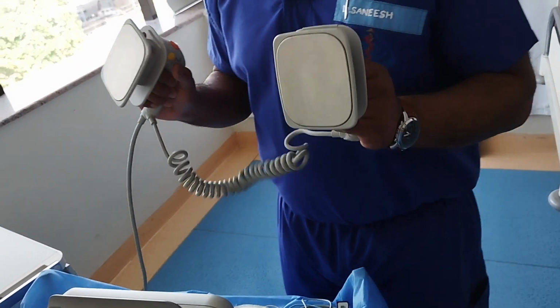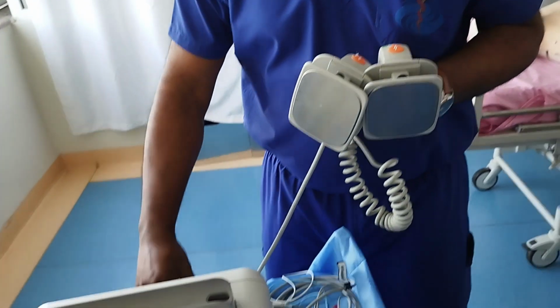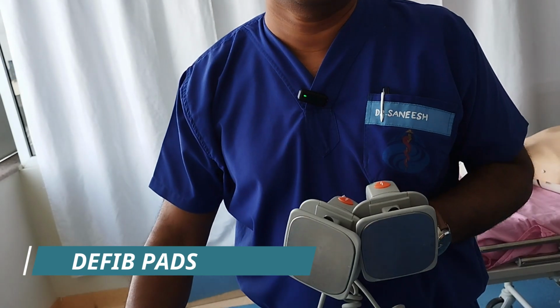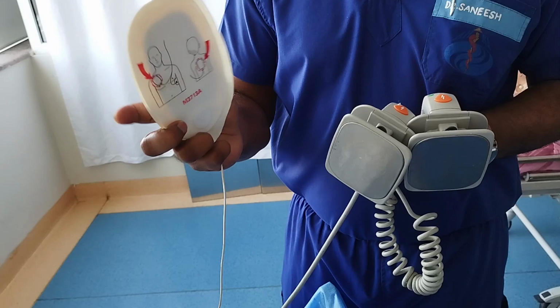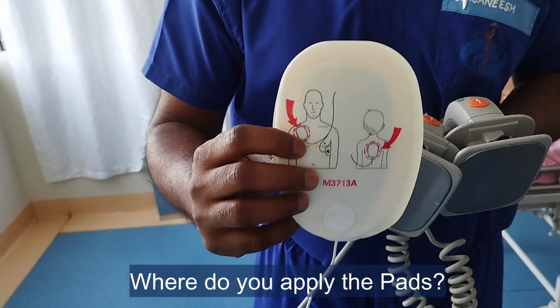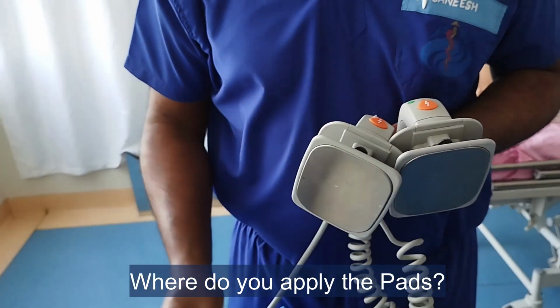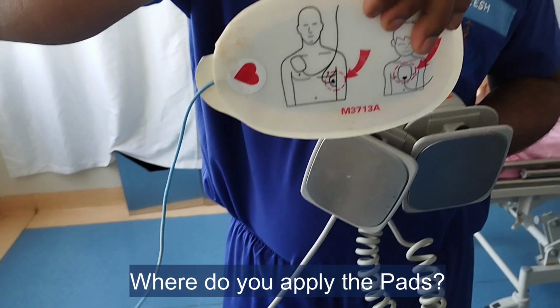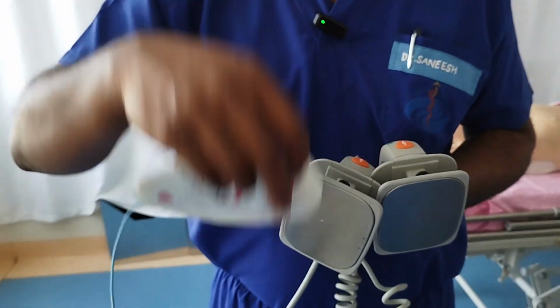So this is how you take the paddles. This is called paddles, and if you are going to use this is called pads, which you can stick onto the patient's or victim's chest. Where to apply? It is actually diagrammatically represented on the pads where to put. For example, this one you can put below the right clavicle or right infraclavicular area, and the other pad will go to the apex of the heart. This is the regular positioning of the pads if you are using pads.